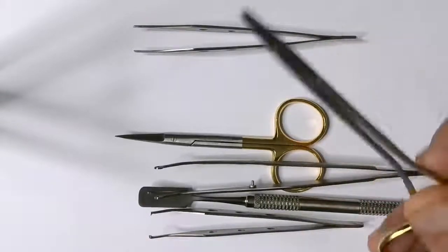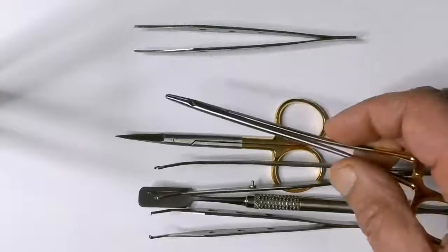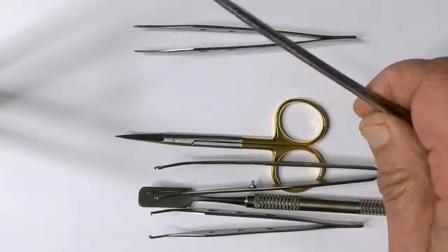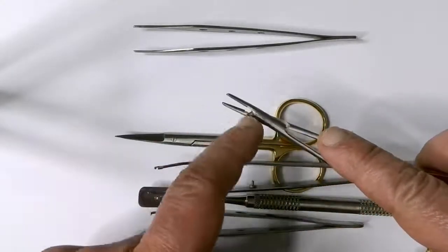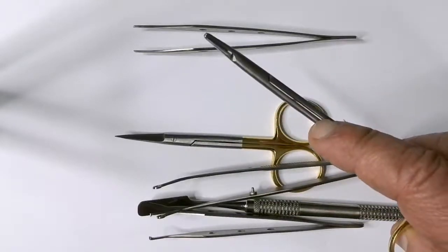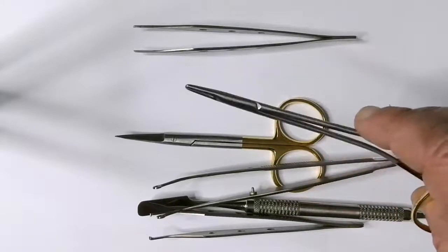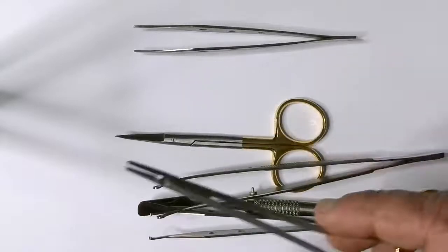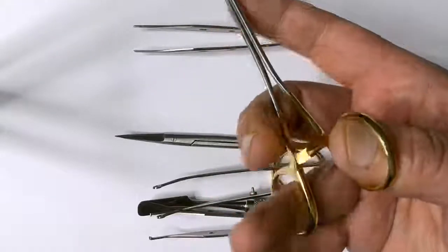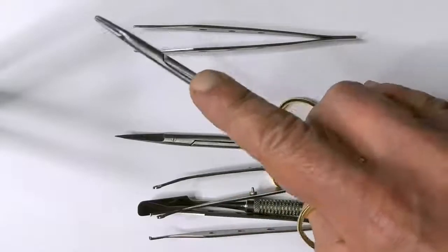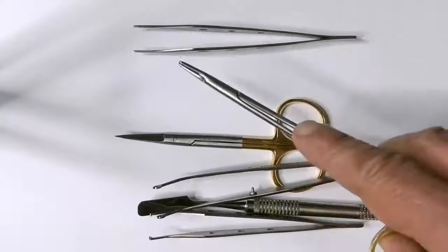Obviously we have our needle holder. And the needle holders can be in many shapes or forms. I like this one, it's nice and small-beaked and it's quite sturdy and I like using this one. You can really use any needle holder so long as you hold it properly. Now to hold the needle holder you have to hold it like so with the finger support like that so that you can use it very easily.